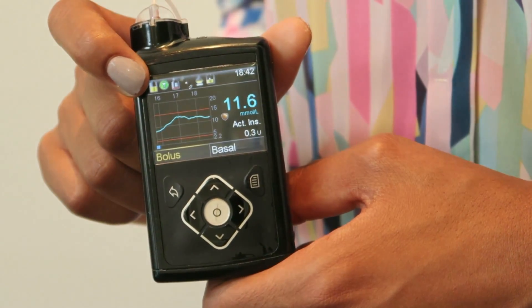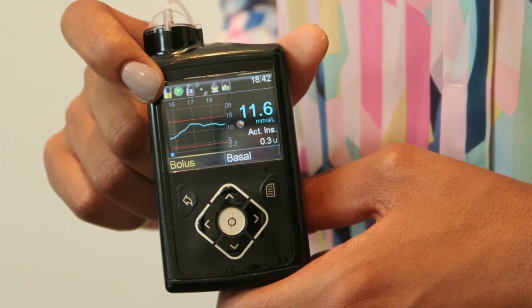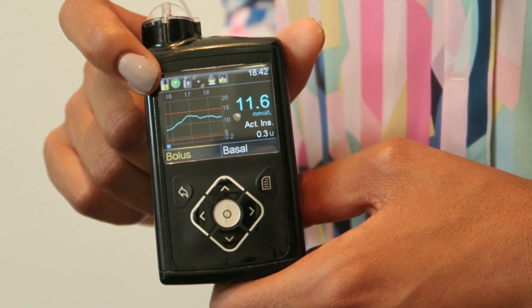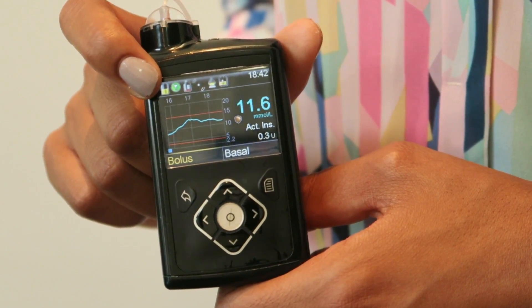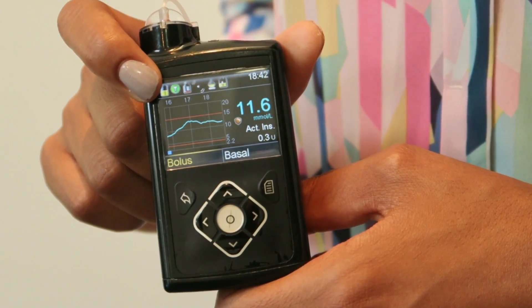Hi, I'd like to tell you a little bit more about the Medtronic MiniMed 640G. We're going to have a brief look at the home screen and also the main menu options.